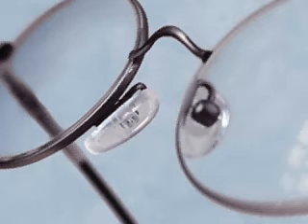the inner canthus. The vertical angle is where the bottom of the pad is closer to the eye wire than the top of the pad. This angle ensures that the nose pad is perpendicular to the floor when the patient is looking straight ahead.